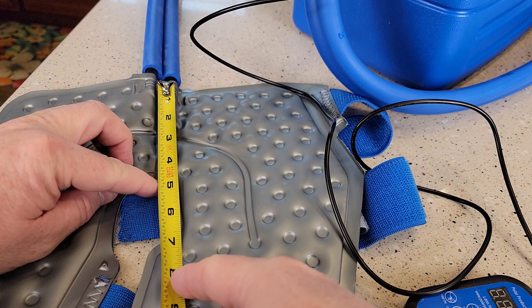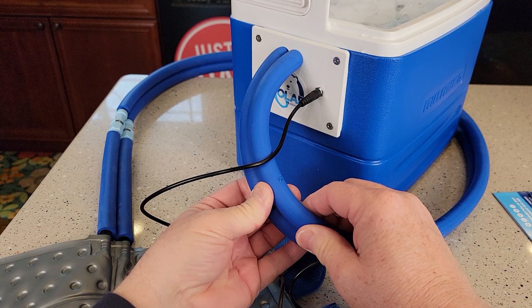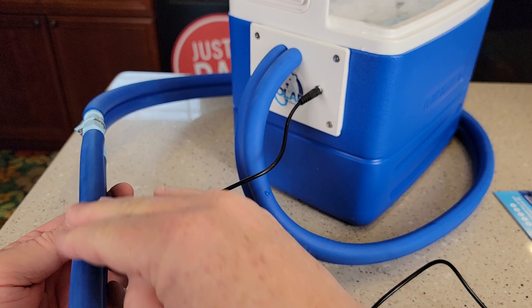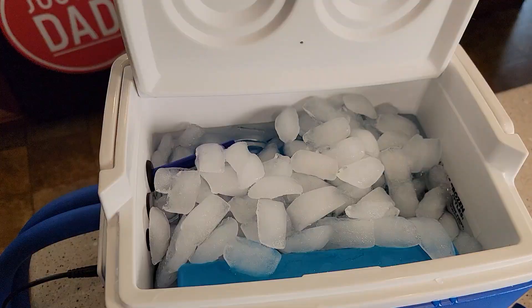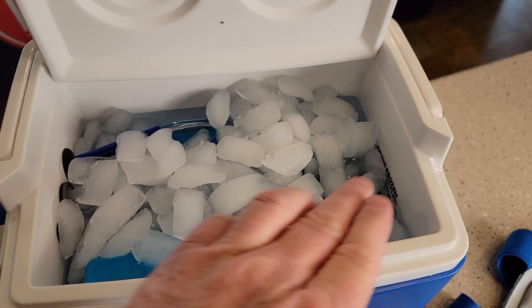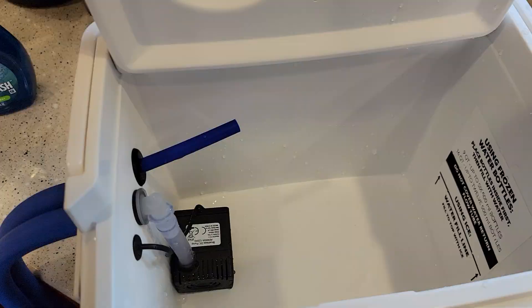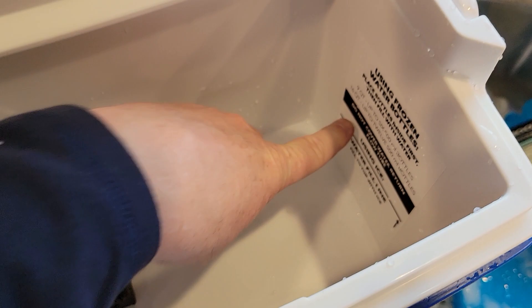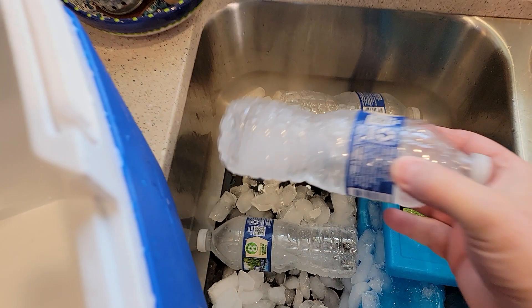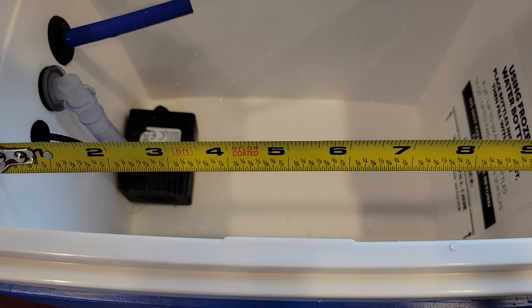So some basic measurements — the pad itself is right around 11 inches. To the opening here is about 5 inches, and overall it's about 11 inches. It does have this insulation on the tubes, so you can lean these up against your leg. If it was exposed, these don't get really hot, but if the tube didn't have this covering on it, it could get kind of cold next to your leg. So I've got mine on — there's a fill line inside where to fill. You're going to fill it up with water first up to the line, then fill it up with ice to the level where the water's coming out. I use ice packs, but they say to use frozen water bottles — it can hold up to six frozen water bottles, and it says it lasts longer if you use frozen water bottles than just ice.